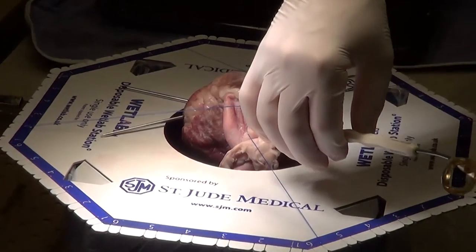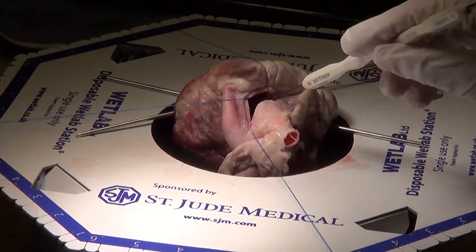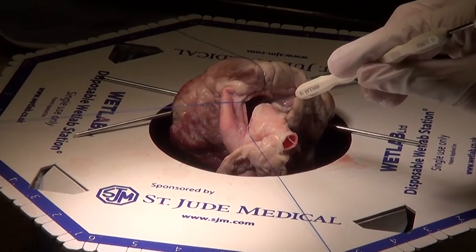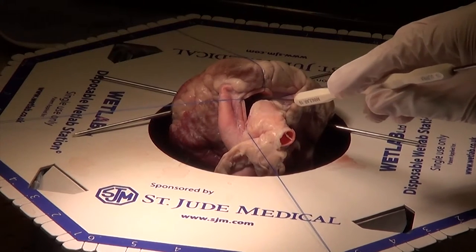This is perfect to show you now. I can feel the tension. You're not going to cause a problem. You feel the resistance? Yeah. So how can I teach that to somebody? I've got to give it a bit of a push, but how much is the right push?